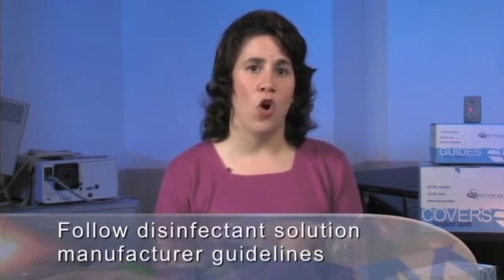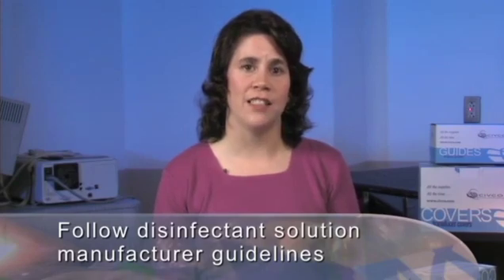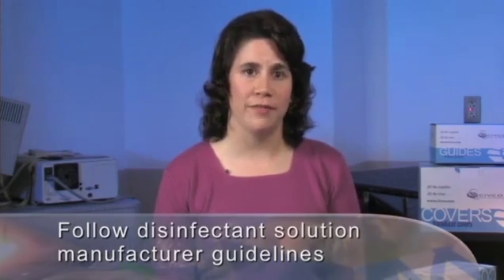Appropriate cleaning and disinfection of the ultrasound equipment is essential, especially when invasive procedures are being performed. Always follow FDA and AIUM guidelines, as well as manufacturer recommendations, and always follow the manufacturer guidelines for the disinfecting solution you are using.